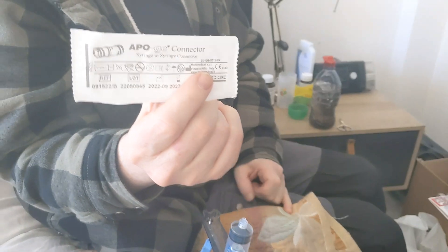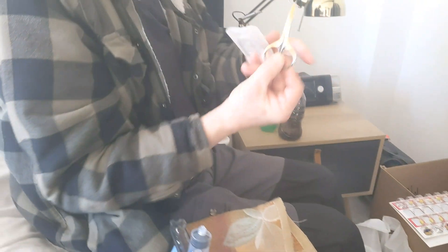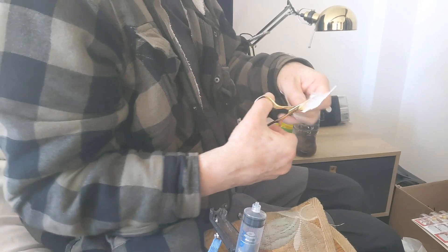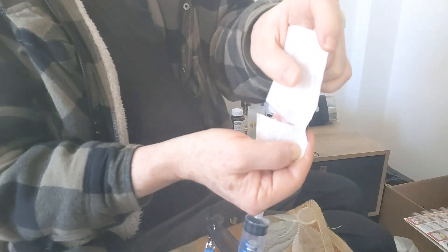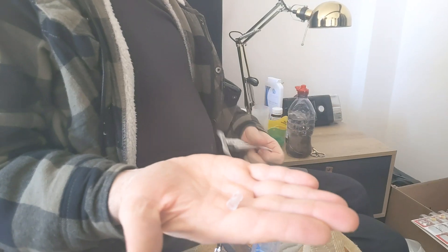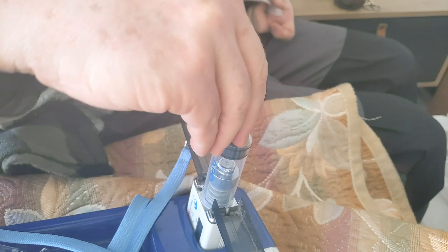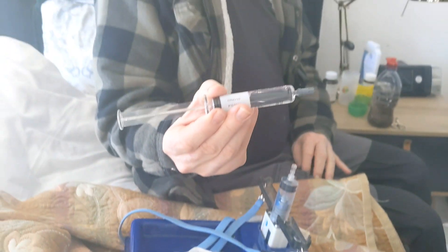This is the connector, and this is necessary. I use a pair of scissors because I can't use my hands so easily to open this packet. I open it like that, then squeeze from the top, which gives me the connector. I put this connector onto the syringe and twist it until it's locked — I push down and twist, which locks it in place.